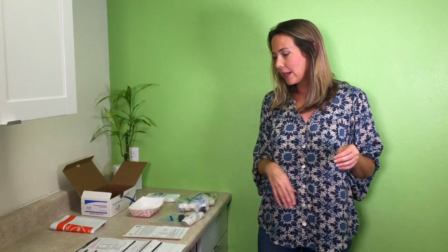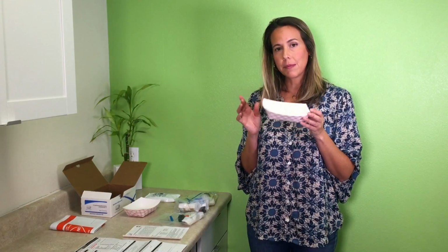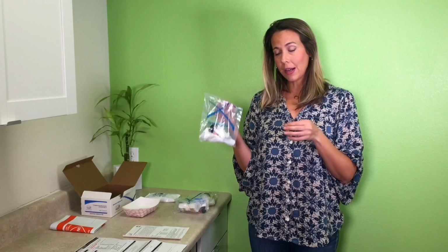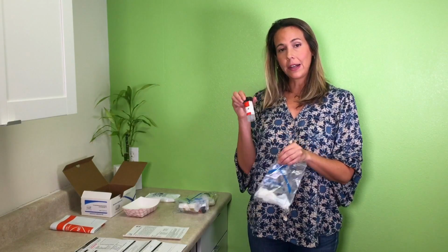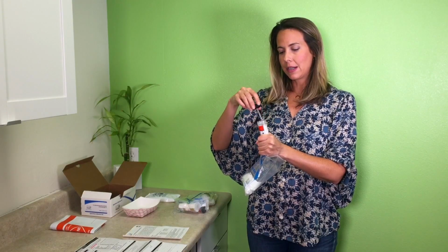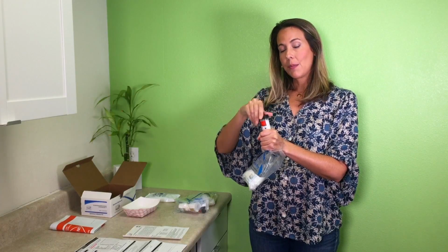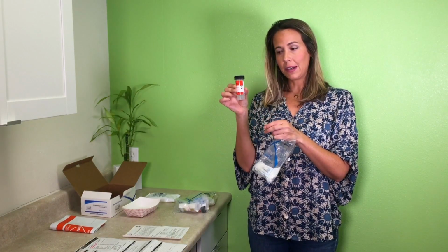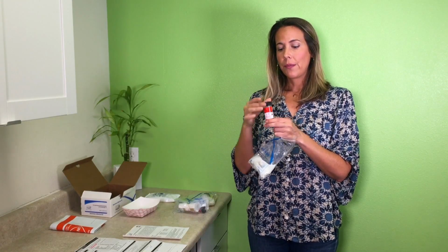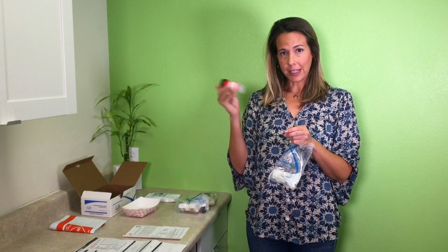Okay, so you're ready to collect your first sample. You're going to collect your first stool specimen in the container provided. You're going to take your day 1 Ziploc, take the vial, and unscrew the black capped vial that's inside. Use the spoon that's attached to collect part of the stool sample, and fill up the vial until the very top line. It's labeled for you. Close it really tightly, and then shake vigorously for 30 seconds.